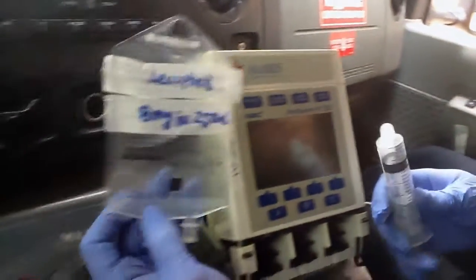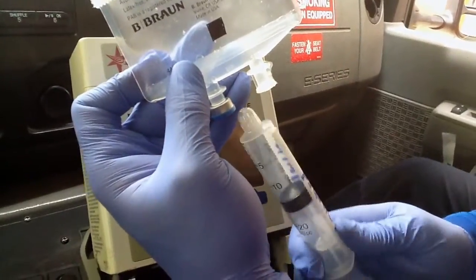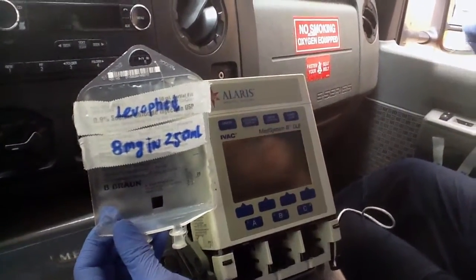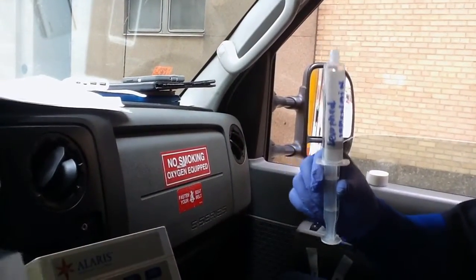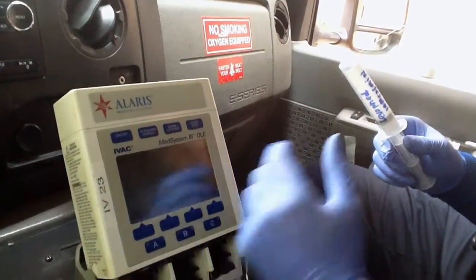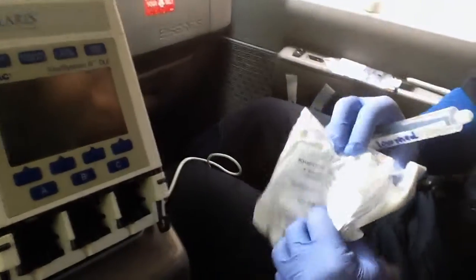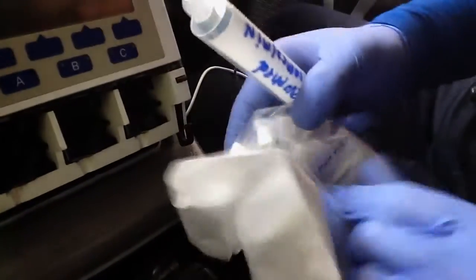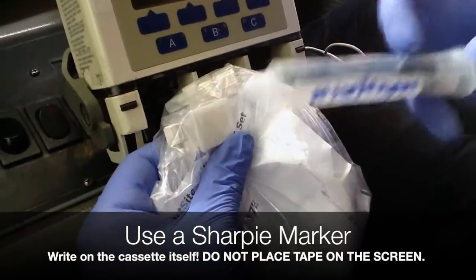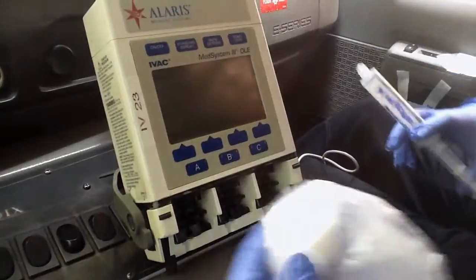You arrive at the port side, put in an 18-gauge needle because it's quicker to withdraw, and from the port you withdraw as much medicine as you need for the duration of transport. The patient is never off the medicine. You label the syringe correctly — put tape on the syringe, not on the unit itself, because tape will damage the screen. You can write on the cassette: the drug name, dosage, flow rate — anything you need.